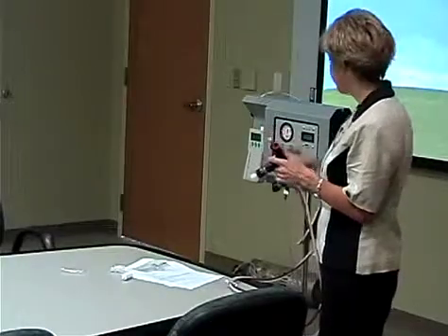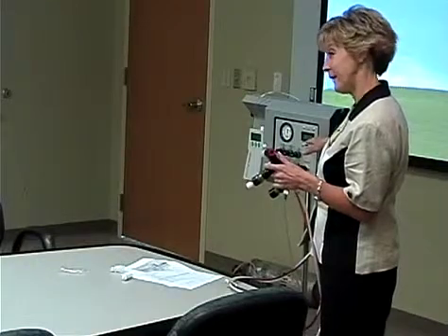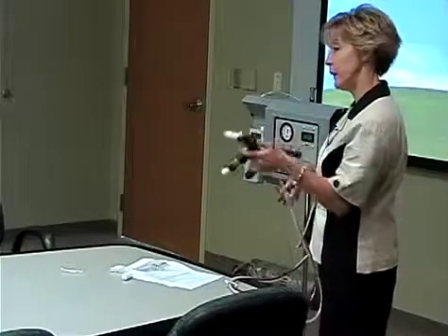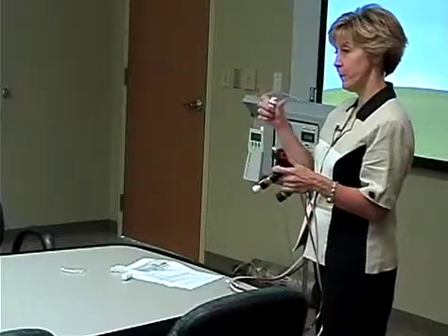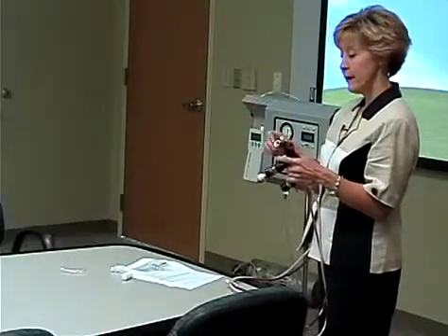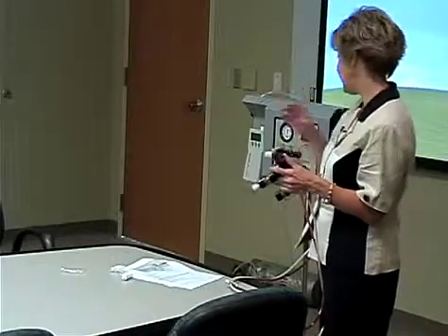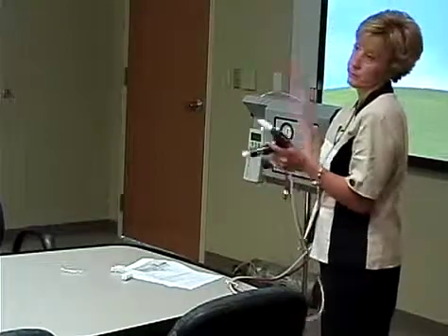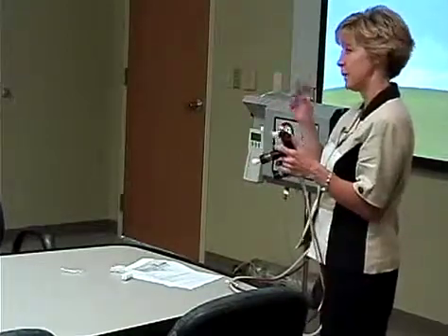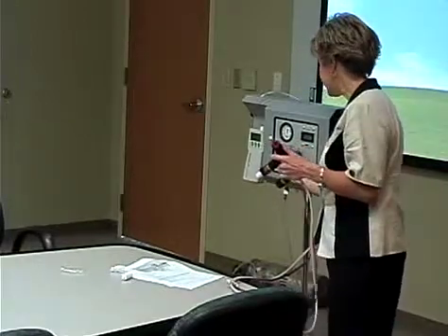Lung you use, as you set up the vent, you may not have a rate here. Once you put it on the patient, you will. We find the best results with the white test lung that we use. If you've got very low amplitude, big amplitude, then it doesn't sense it and you don't get that readout. And we know about that. It's always been that way. It's gotten a little better. They've made some adjustments, but just know that.